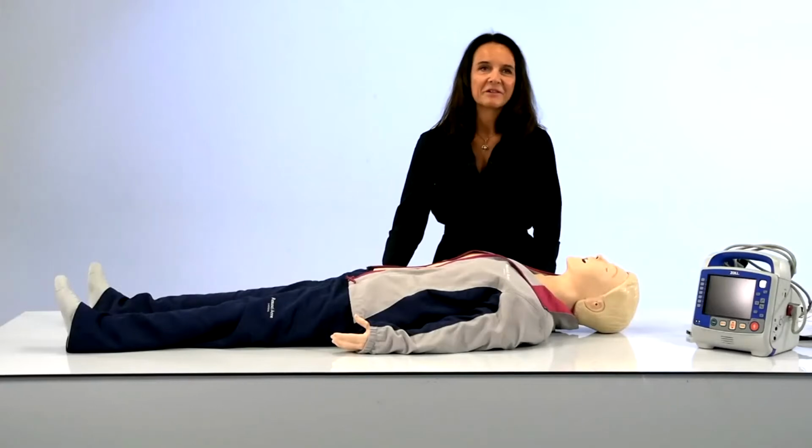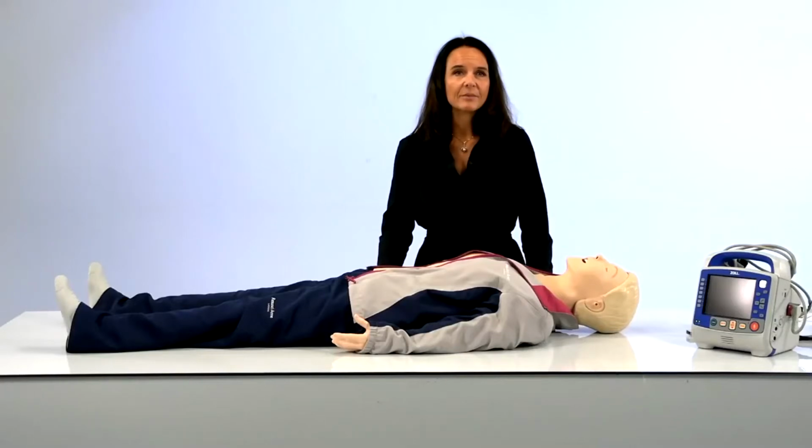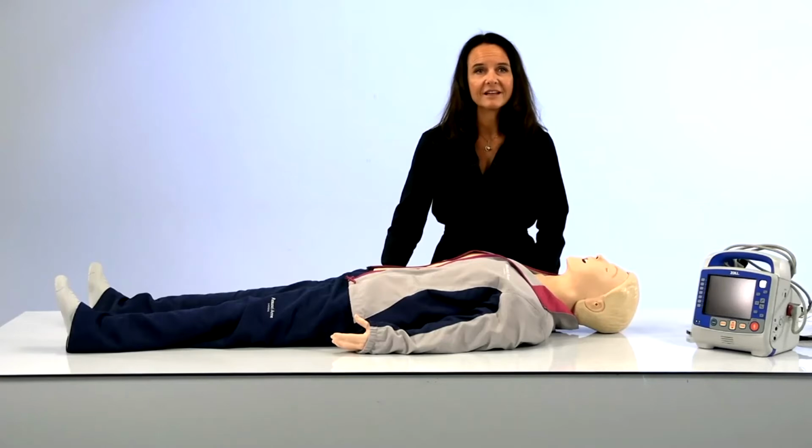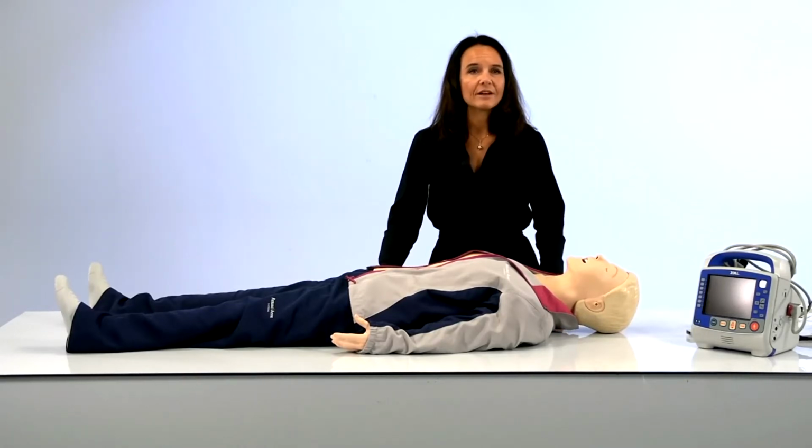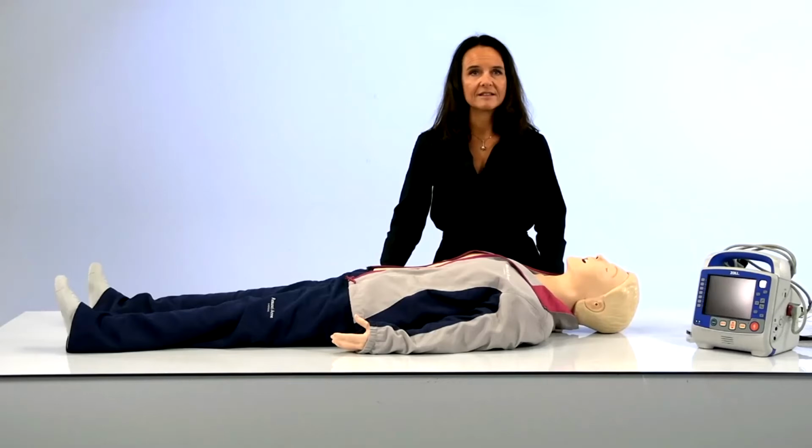Hi, yes, thank you. My name is Mette Alhaug. I'm one of the product managers at Laerdal, and I'm excited to be here today to walk you through what's new in resuscitation at Laerdal. The solutions presented are part of the Resusci Mannequin platform, and they are primarily designed for supporting high-performance CPR training, which is one of the Global Resuscitation Alliance's 10 steps to improve survival from sudden cardiac arrest.